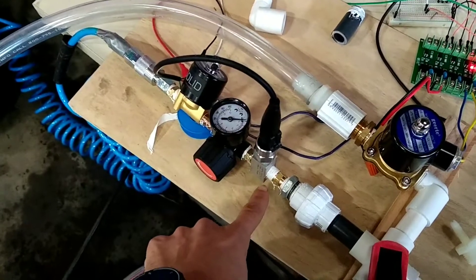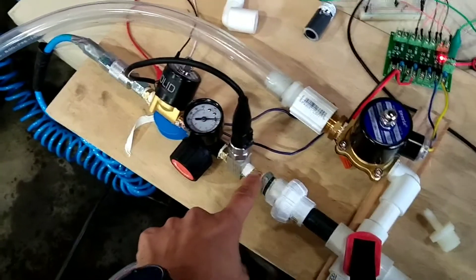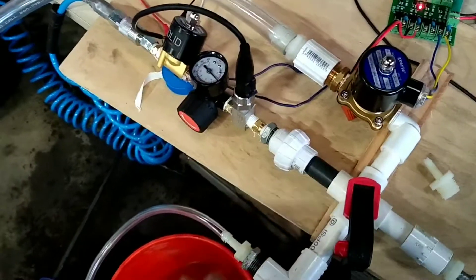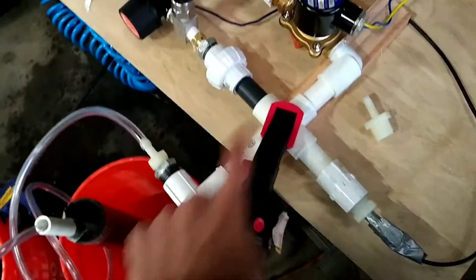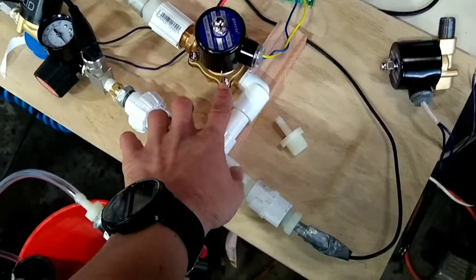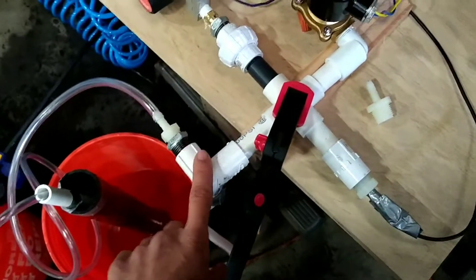Then we have a 43 thou orifice. Stepping up into the patient-sized tubing — this half-inch is all PVC that would need to change. We come to a four-way split. We have the patient airway monitor on this leg, the exhaust side on this leg, and the patient side airway on this side.